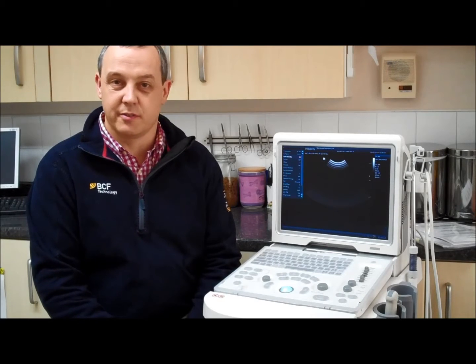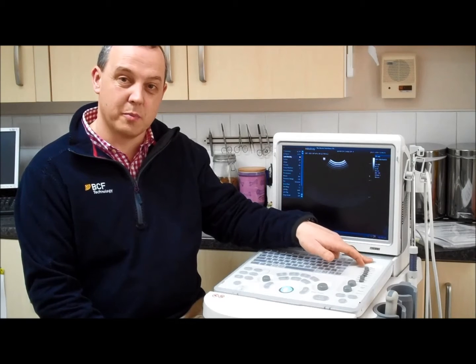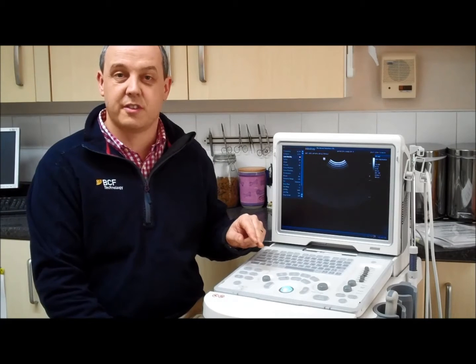Hello, I'd like to show you some of the basic functions and setup of using the Mindray Z05. We're going to cover entering patients, selecting the right preset, and some basic image manipulation setup tools. First thing is to turn the machine on with the power button. And then once the machine is turned on, we're going to first enter patient details.